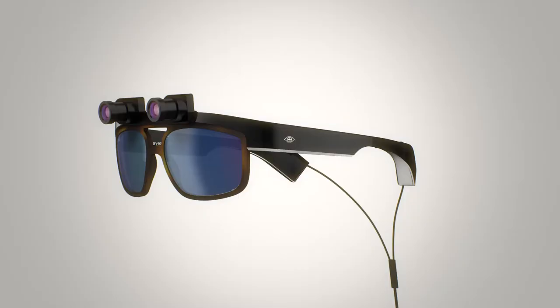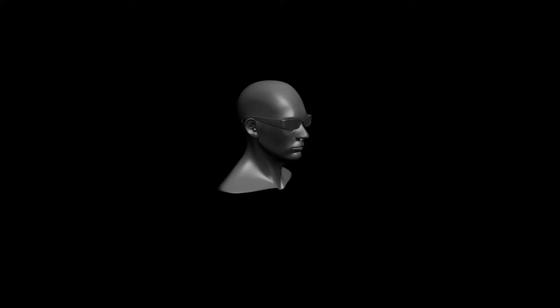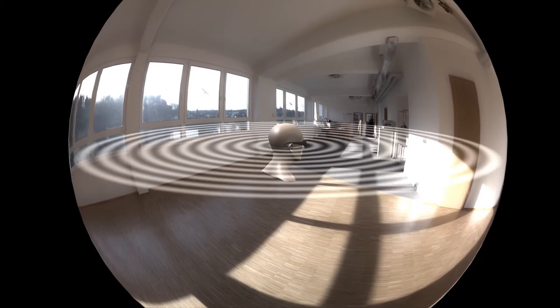The glasses send images to the microcomputer, which processes them in real time, and converts them into a series of sounds that interpret open spaces, shapes and obstacles, with unprecedented accuracy and detail. It's an abstract sound that can be easily learnt.